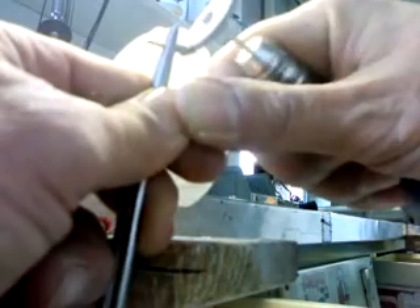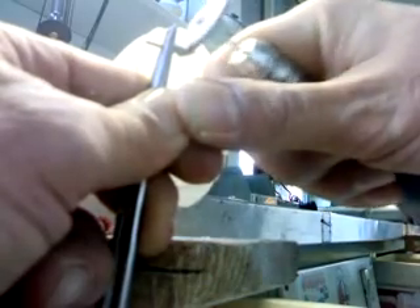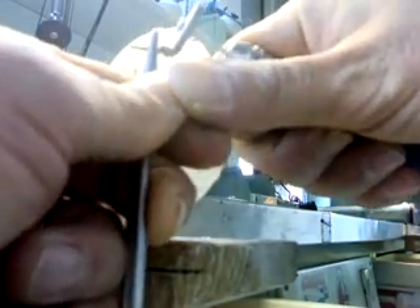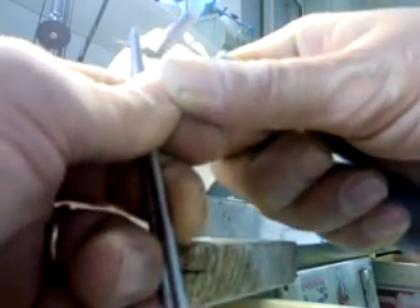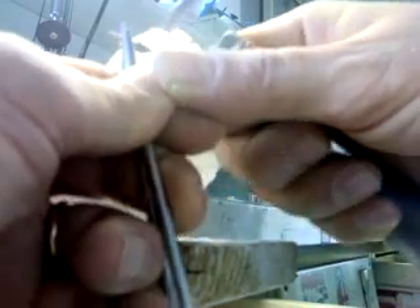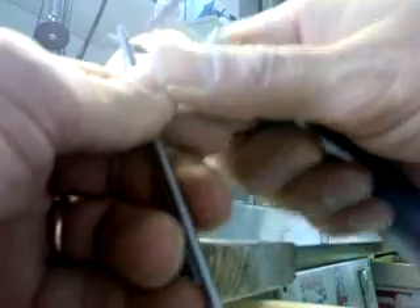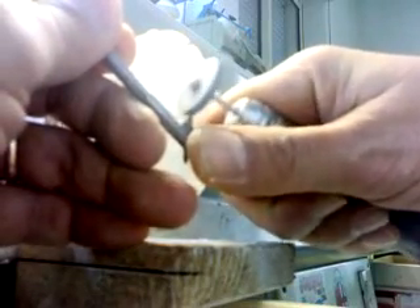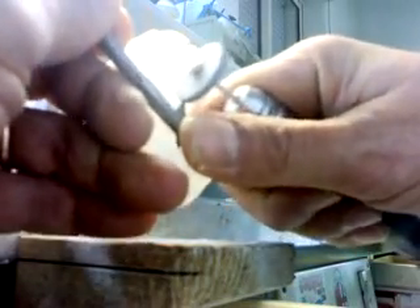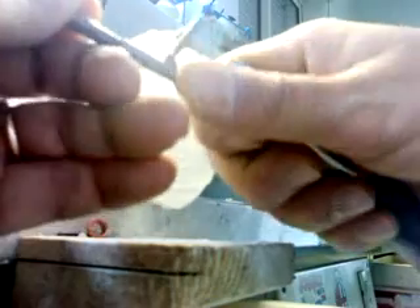I keep the shape of the original post core that the doctor has sent in, and I look at the contour and make sure that it will present no undercuts and the surface will not be edgy, because edges can be stressful for frameworks that will be seated on top of this post core in the future.